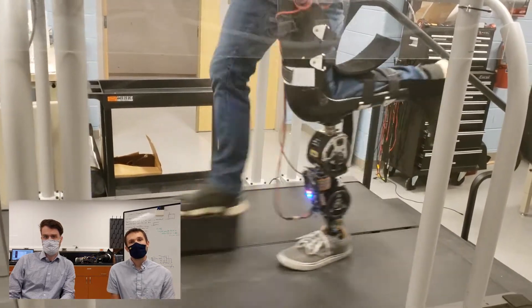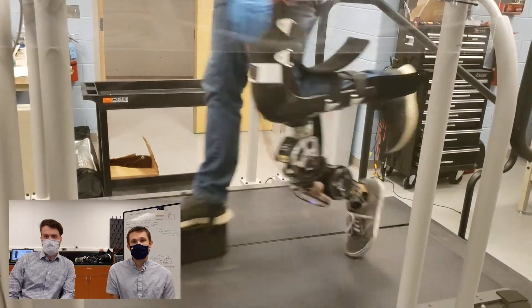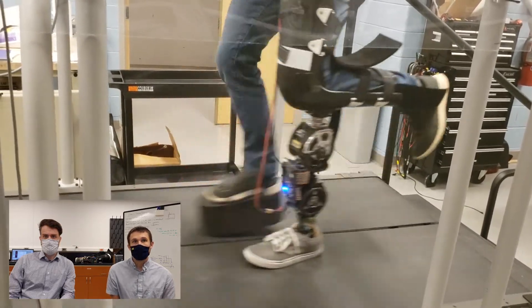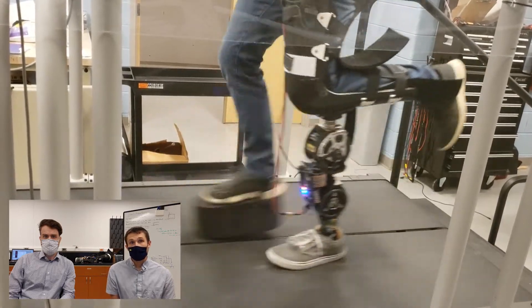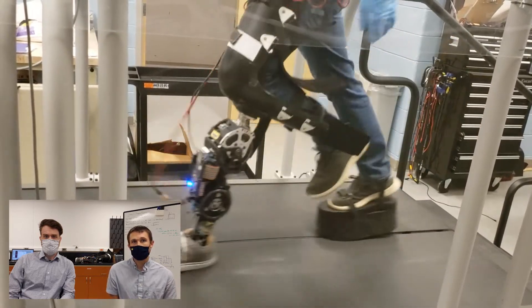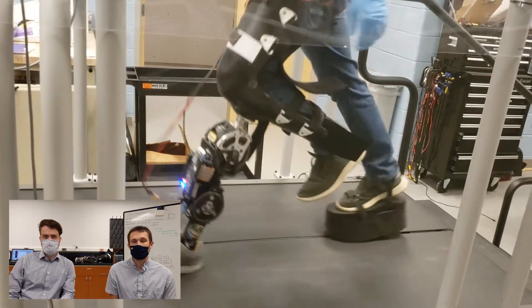In addition, we want to highlight a few more design features of this prosthesis. First, all electronics, power source, and associated components for the leg can be self-contained. All computation is done onboard the MyRIO, which is mounted on the front of the device. In practice, the lithium-ion batteries that we use to power it can also be mounted to the pylon between the knee and the ankle motor. However, in this demo, we have them mounted on the waist for convenience of swapping out batteries.